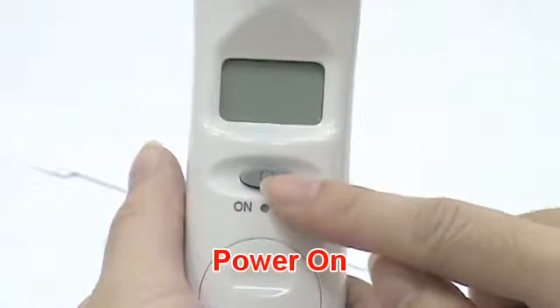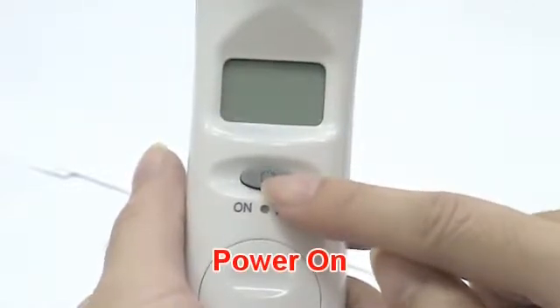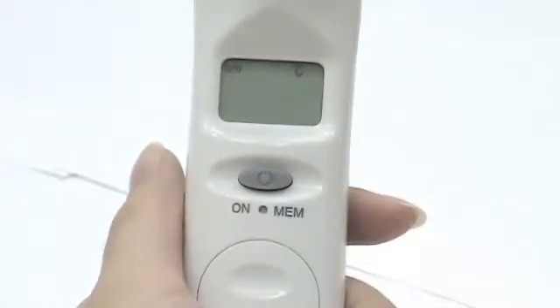Press the on memory button to power on. The thermometer is ready for use after the ear icon stops flashing and you hear two beep sounds.